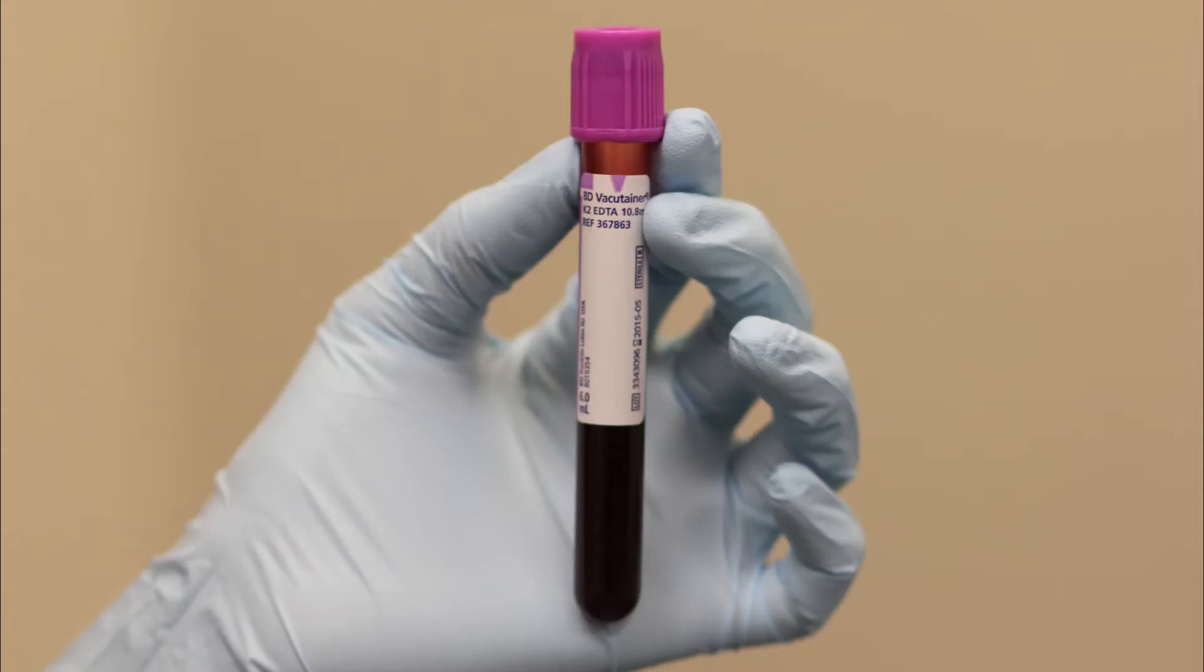The specimen used in this procedure is whole blood, either free-flowing capillary blood or thoroughly mixed anticoagulated venous blood. EDTA is the anticoagulant of choice as it preserves white blood cell morphology.